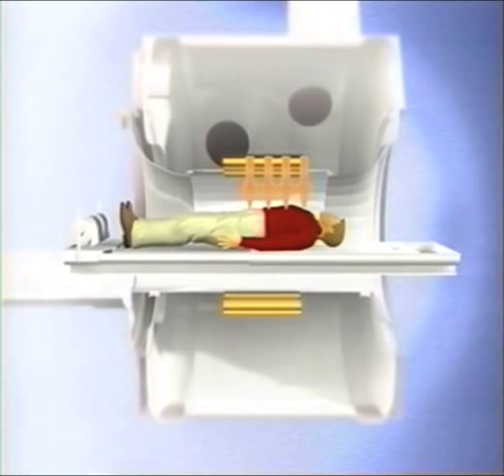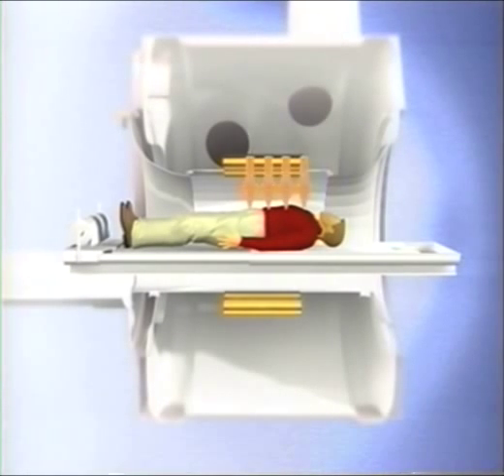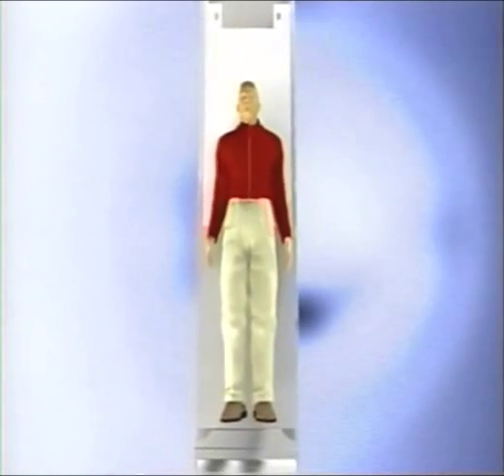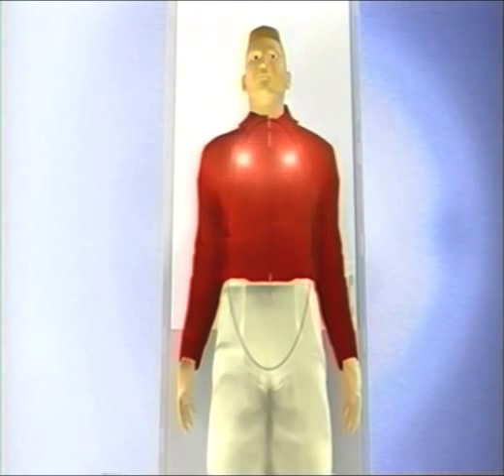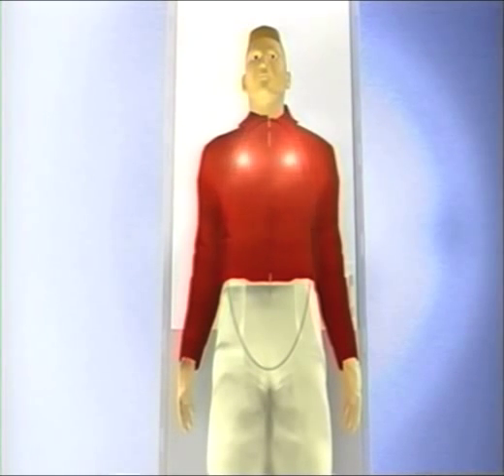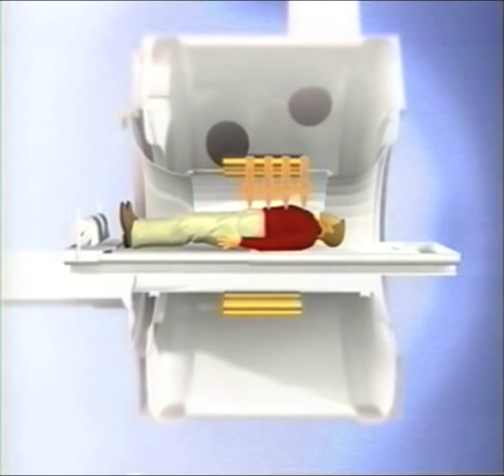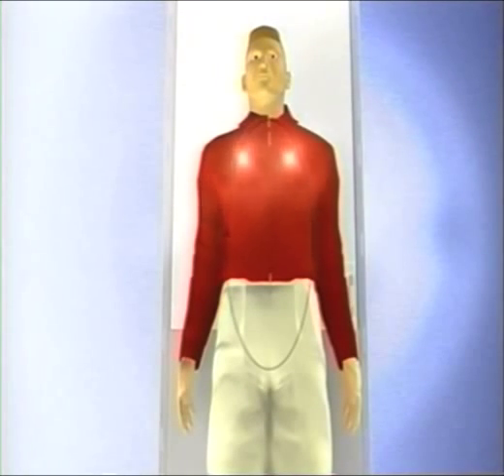The noise level of certain MR systems may require patients to wear hearing protection. In rare cases, quickly switching on and off the magnetic gradient fields can induce electric voltages in the peripheral nerves. These harmless voltages are expressed as a tingling sensation or mild muscular twitching. However, our MR systems are equipped with safety devices for controlling the switching speed and strength of the gradients to prevent nerve stimulation.